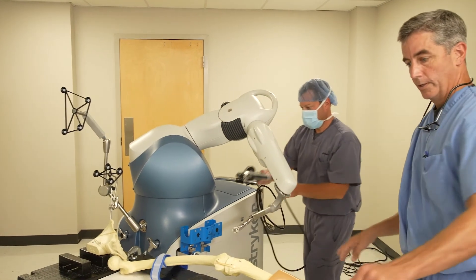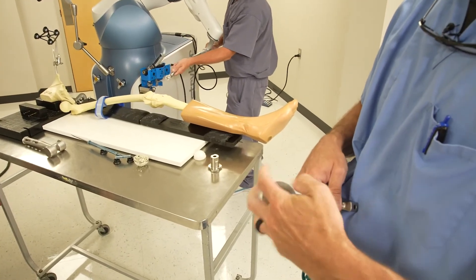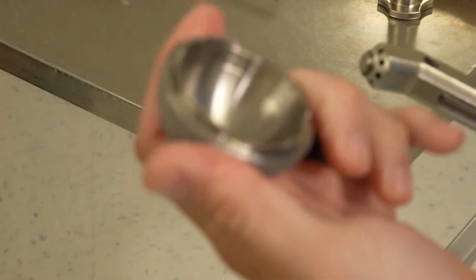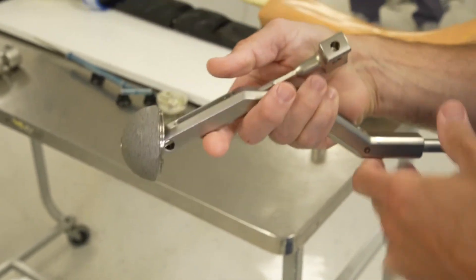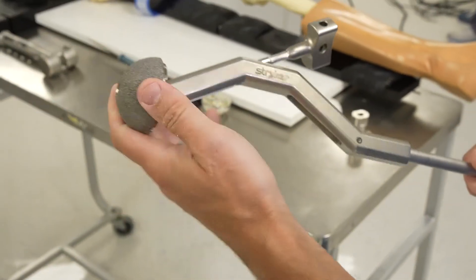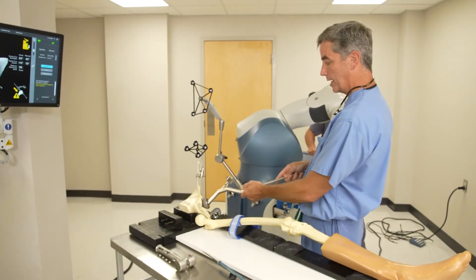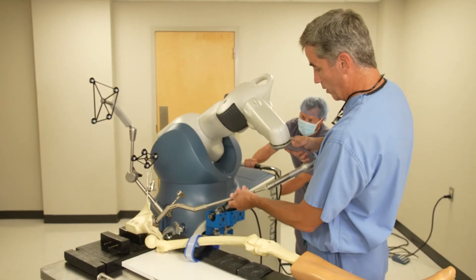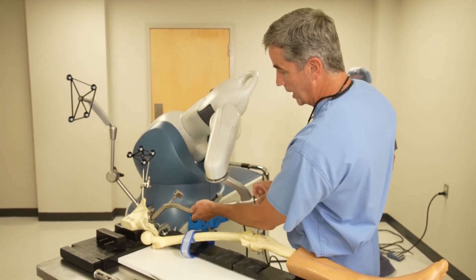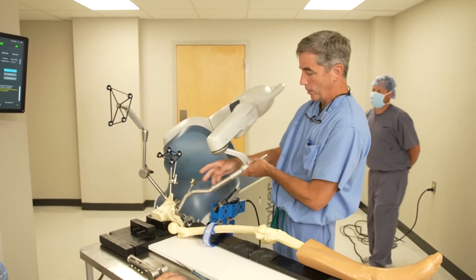Once we've finished the reaming process, this comes out. This is the actual cup — this is the cup that goes in the patient, the final product. It screws onto the arm. They already had it on here because it's not very easy to get on. The arm, via the computer, will know where this is. When doing this surgery live, we have a bunch of soft tissue, so I usually get this in roughly into position and then bring the arm in, and kind of put it on. I'm going to put it way off so you can see what this thing does.